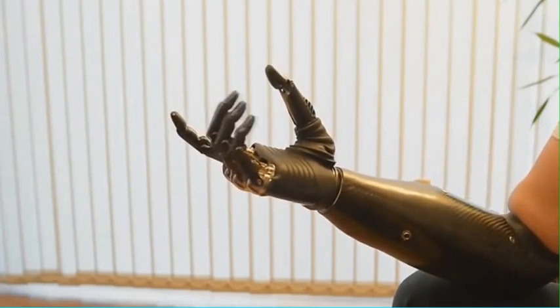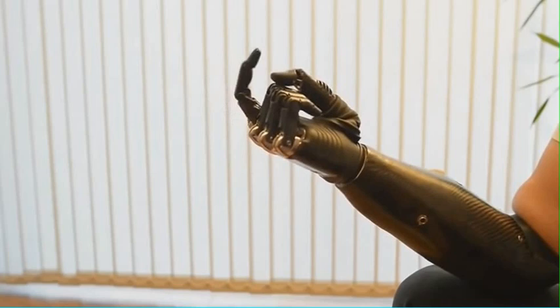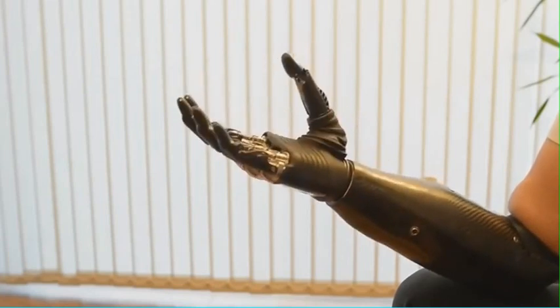Rotate the hand here. This is trigger grip, but it can be adapted if you so wish, if you've got the guts.